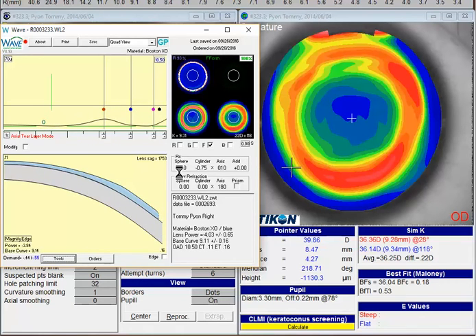Now that your lens is redesigned, you can see you have a little bit more alignment through that far periphery — it's a little bit more aligned here. In your original design, you had a few areas that were upturning and a few downturners. I think this will give you a little more stability with the fit.